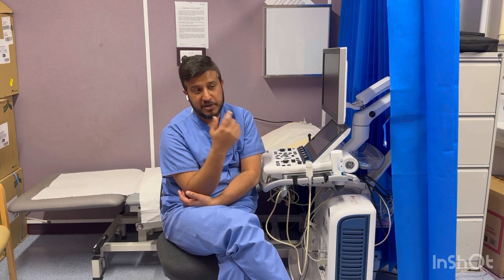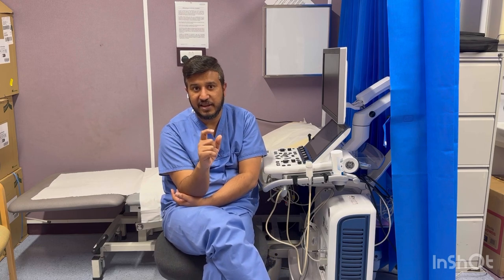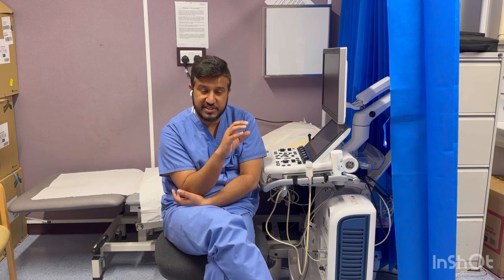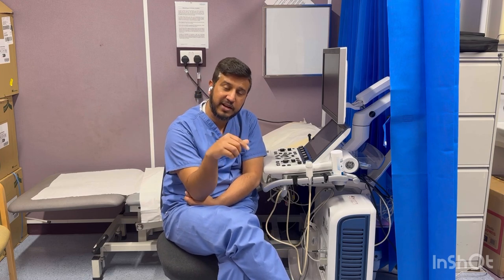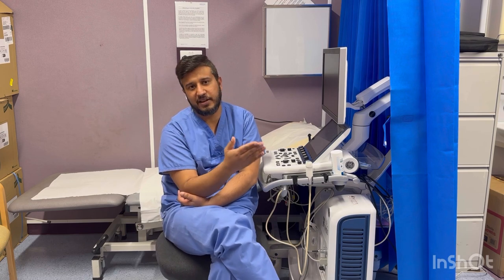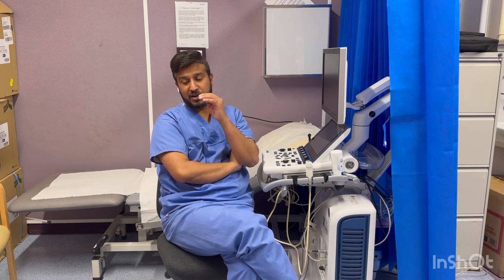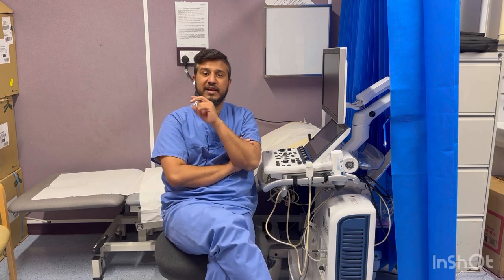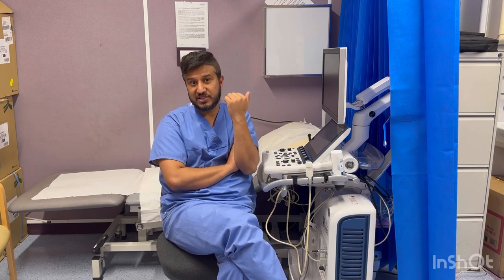First, pulse wave Doppler: we use it when we need the velocity of a precise area and when we are targeting lower blood velocities. It gives us the velocity of the same area where you put the cursor — wherever that mark is, you get the velocity of that area. In pulse wave Doppler we use one crystal that works as both sender and receiver — it sends the pulse wave and then waits and receives it.